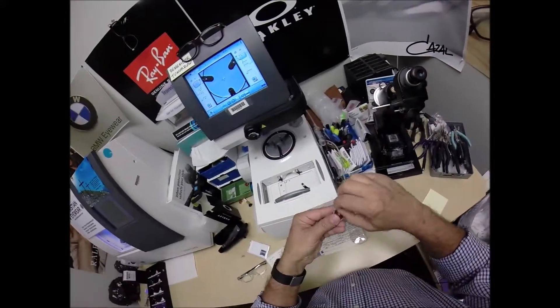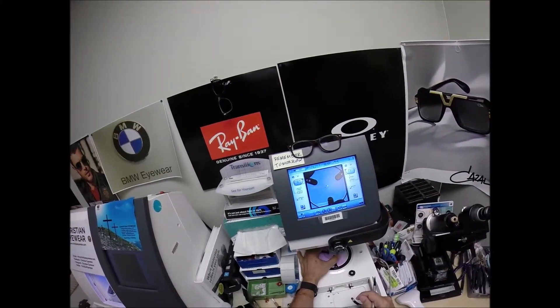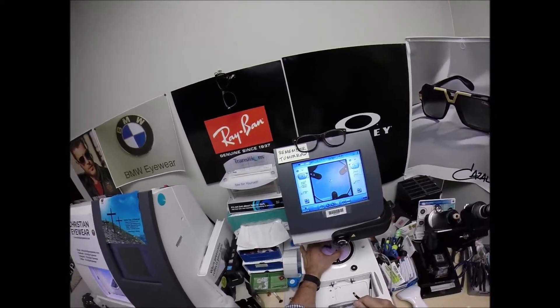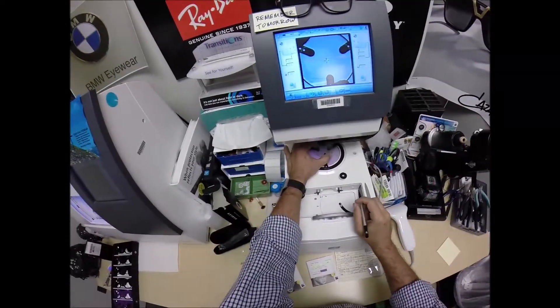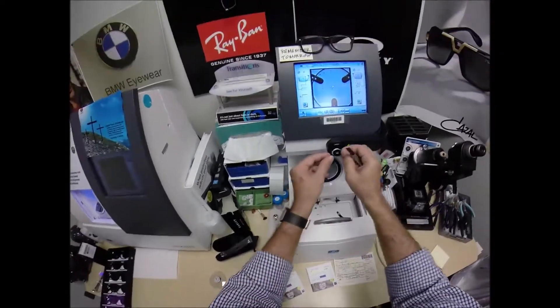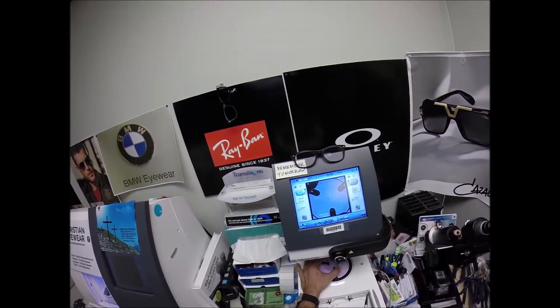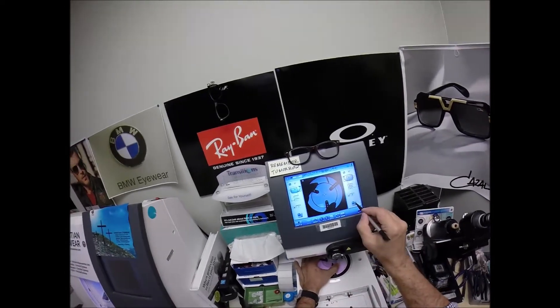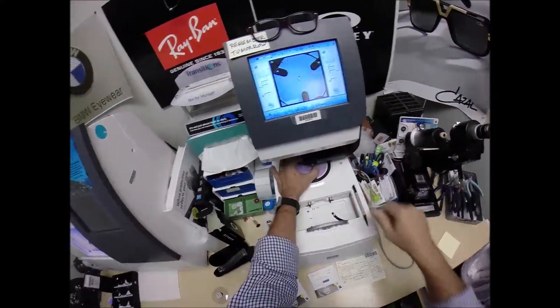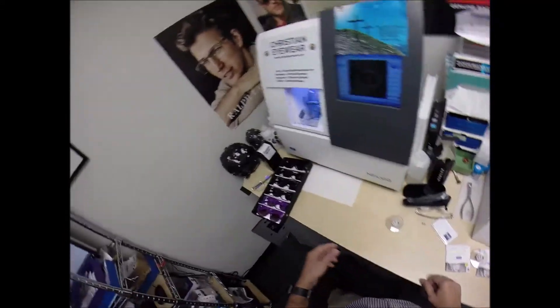I'm going to place that one onto the block, pull the paper away to make the black side sticky. That silver button is a magnet. Same PD, same optical center height. Same sad story about why my wife and family would rather me be at work than be at home. My wife wants me to work 80 hours a week, come home, hand her my paycheck, then go back and leave again.